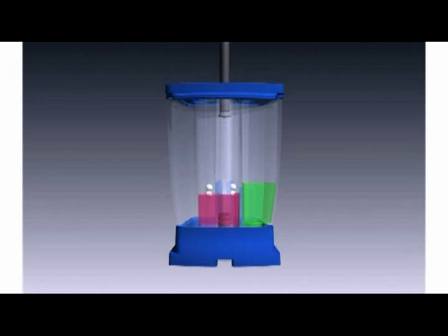When the instrument begins, a plunger rod lowers and the valve body rotates to the first position. It activates the plunger which draws the sample into the central tube.